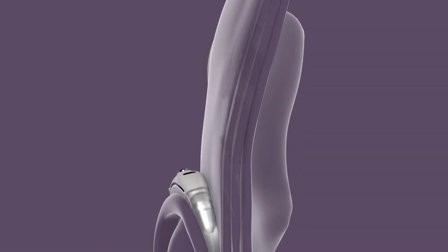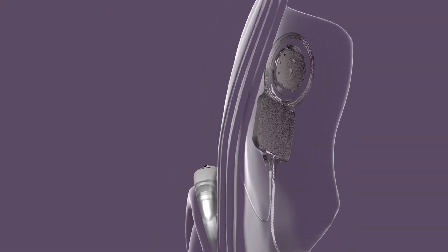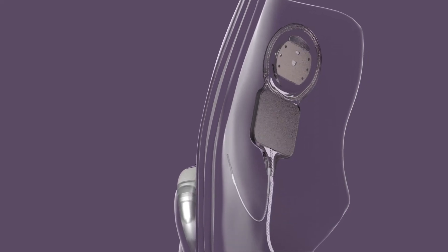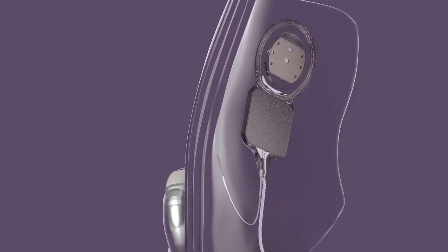The sound processor is connected to the implant which sits under the skin. The implant is attached to an electrode that is placed by the surgeon in the cochlea.